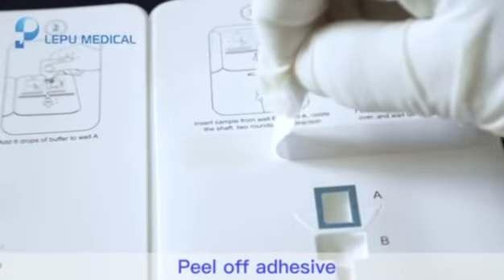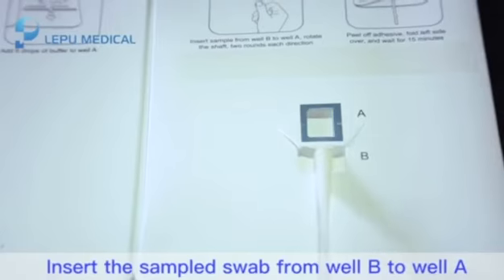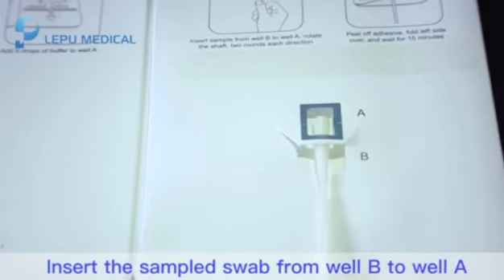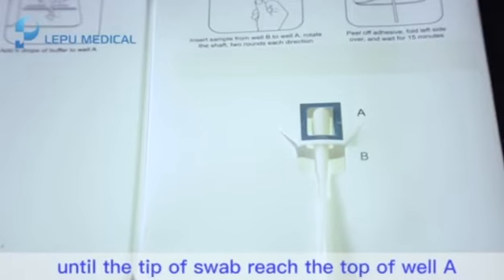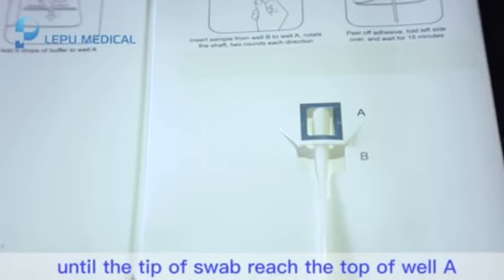Step 4: Peel up adhesive. Insert the sample swab from well B to well A until the tip of the swab reaches the top of well A.